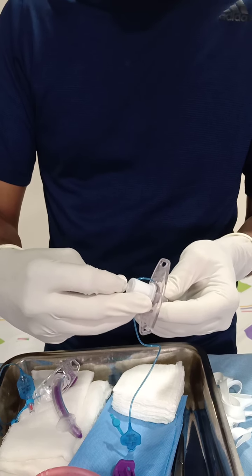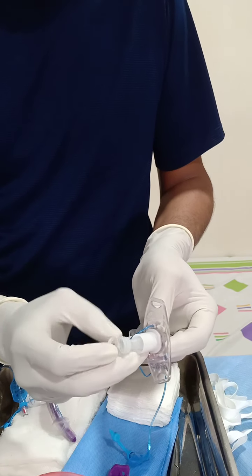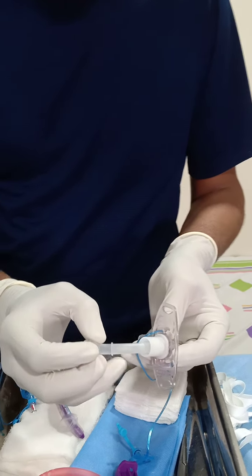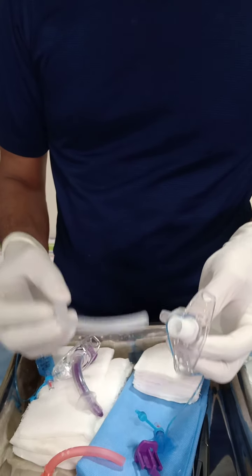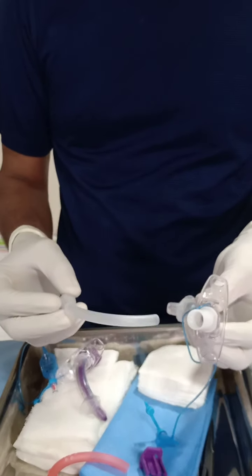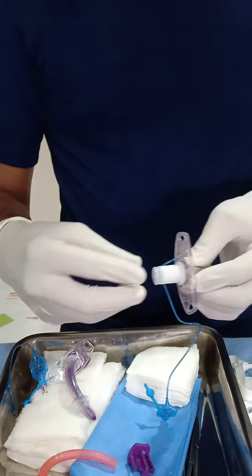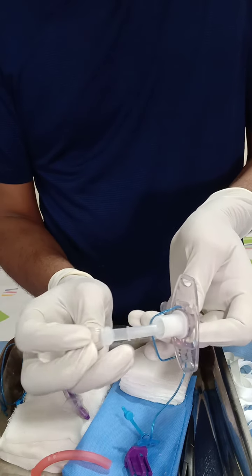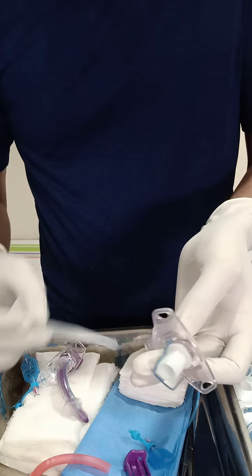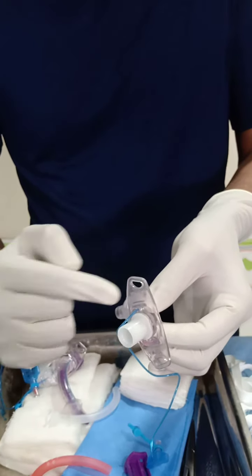This cleaning can be done two to three times and is especially useful when we send patients home on tracheostomy tubes, because the patient or caretaker can take it out and clean it without requiring a suction machine — although it is desirable that they also have a suction machine available. The other advantage is that if there is a sudden blockage, the patient or caretaker can immediately pull the inner tube out so that the outer tube lumen remains patent and the patient can continue to breathe until the inner tube has been cleared.